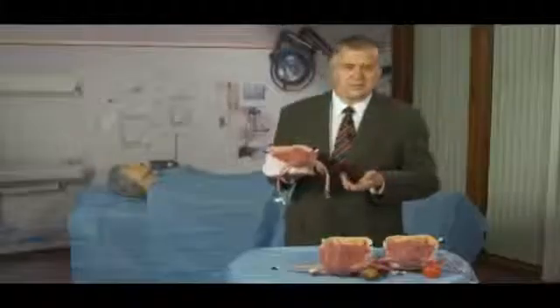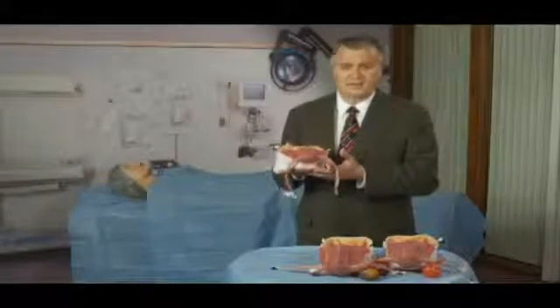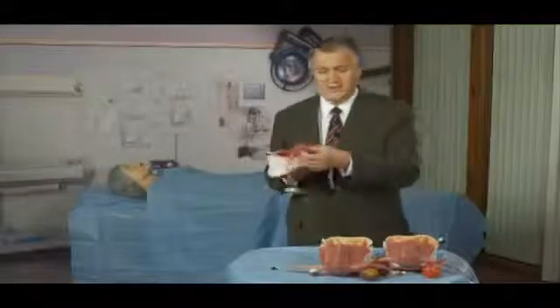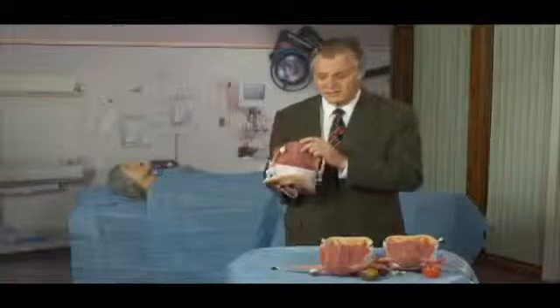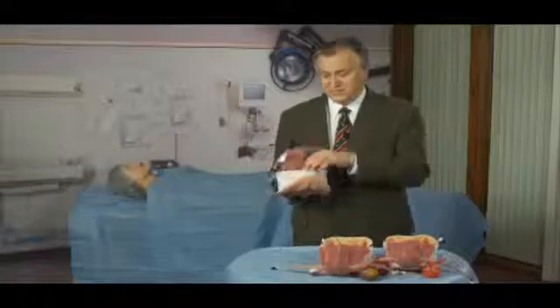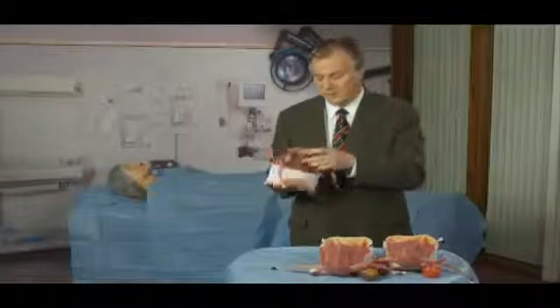It also has a blood supply into the uterine cavity so that a vaginal hemorrhage can be documented in a scenario such as the von Willebrand's disease scenario. So the vision of this particular uterine assembly is that the learners could first do a vaginal hemorrhage scenario, then they could do an ectopic pregnancy scenario, and then they could do a hysterectomy scenario. And if they wanted to, they could injure the bladder and then they could repair the bladder.